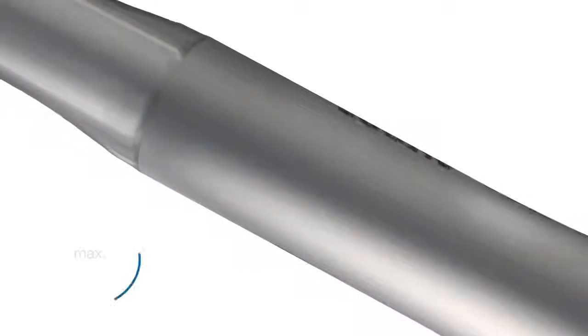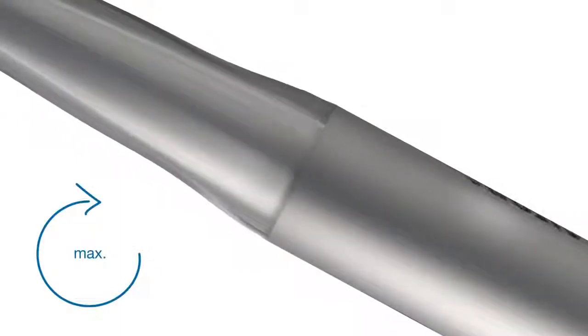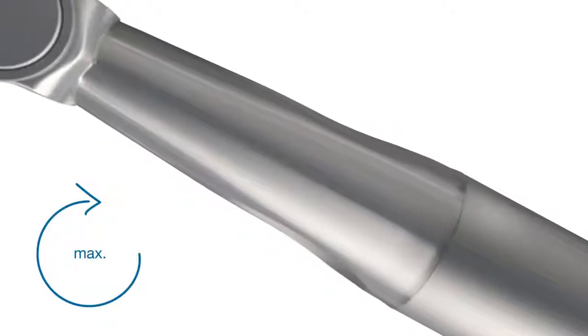The VDW Gold Reciproc is a torque controlled motor and has two safety features for rotary file systems.